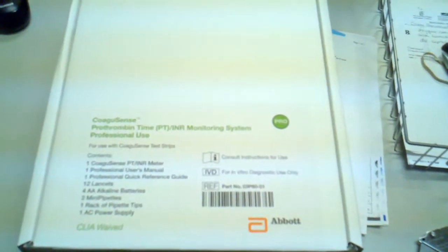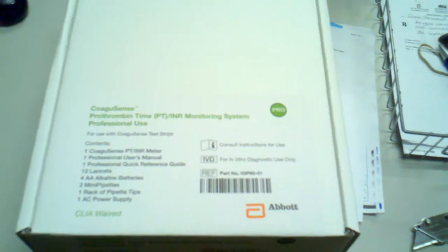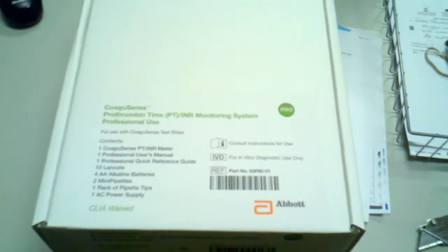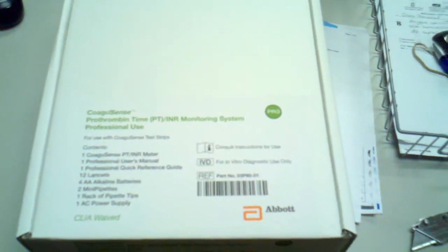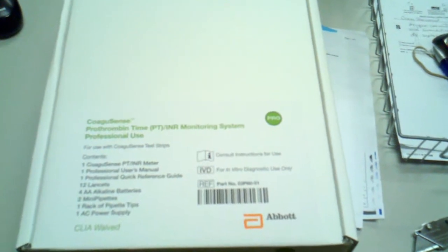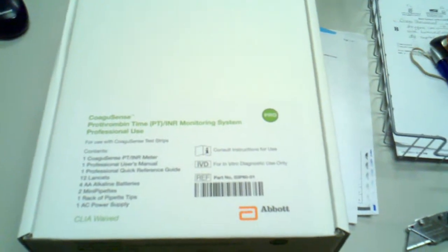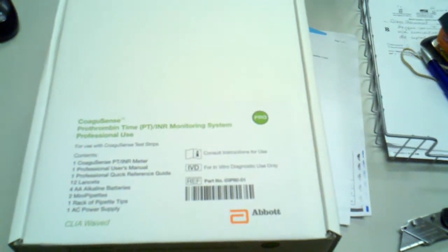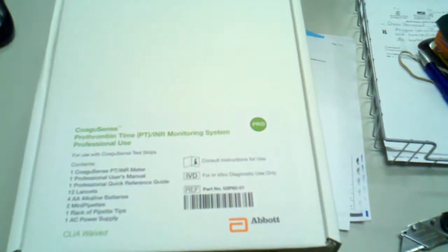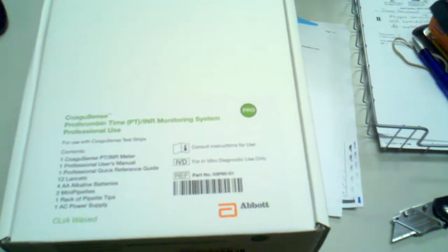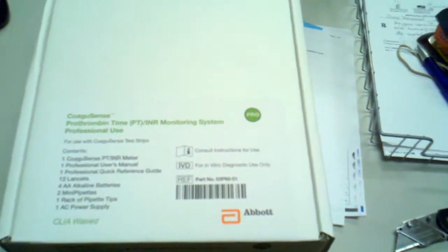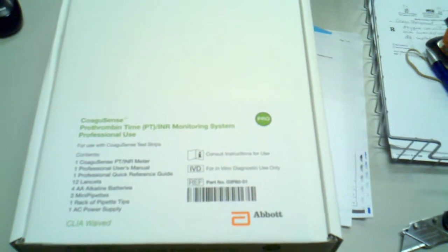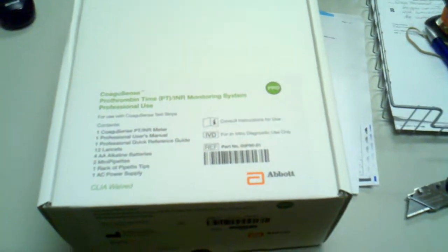What happens is they're controlling the billing aspect of it. So if you have insurance, they're actually sending out nurses and home care agencies to do the billing and going to your house and testing. They're not allowing people to get these units from the retail standpoint.